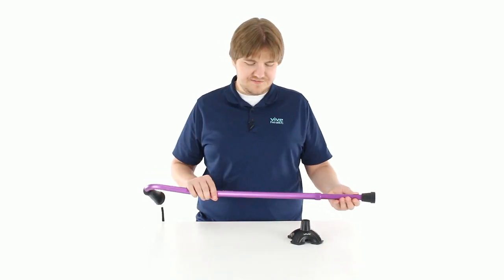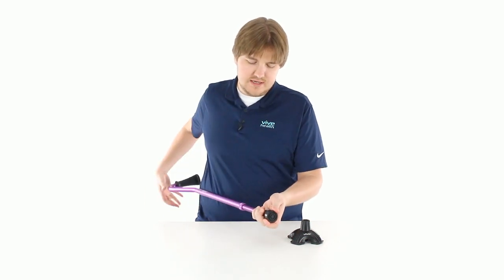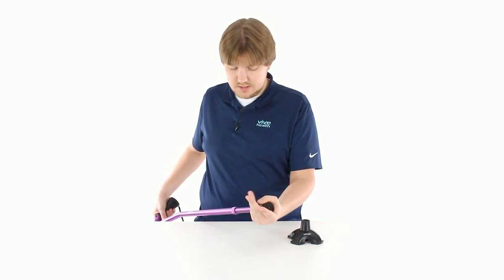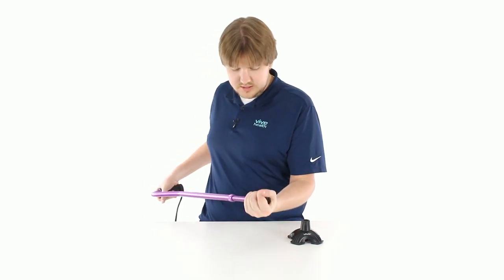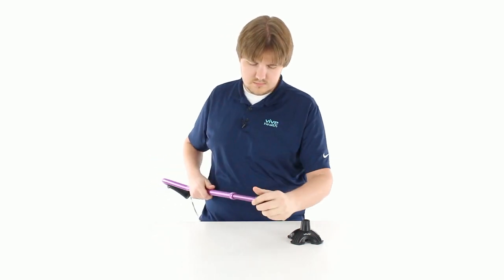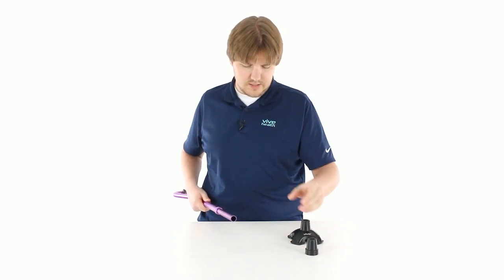If you've got our offset cane, our folding cane, any of those, it's easy to remove the existing tip. They're not held on with any sort of special trick — it's just friction. So get a grip there, you can kind of twist to loosen it and pull, and they pop right off like so.